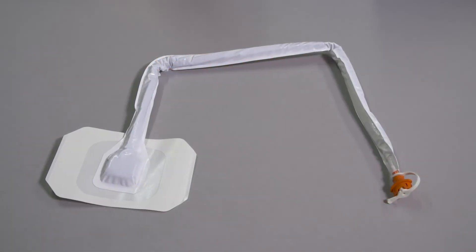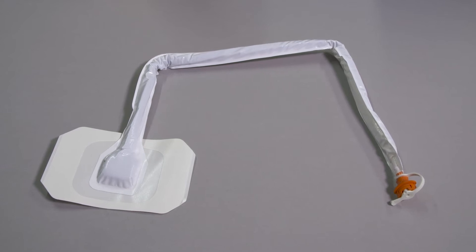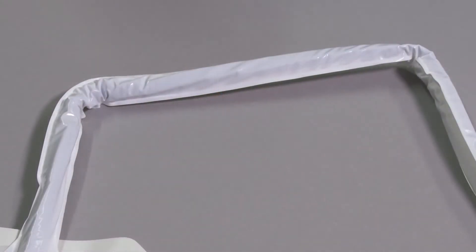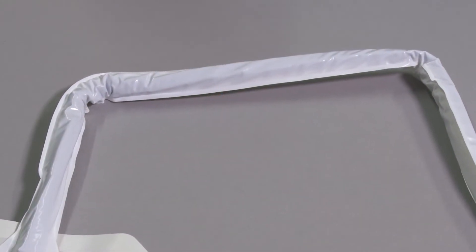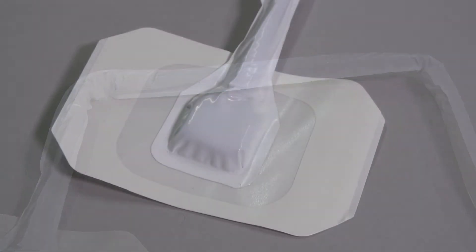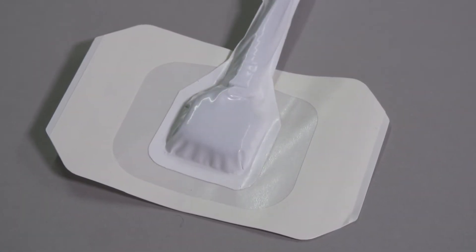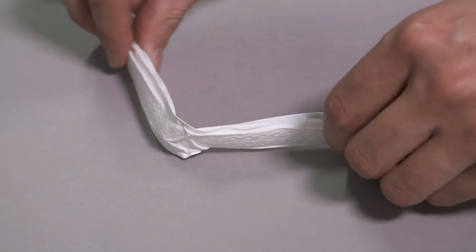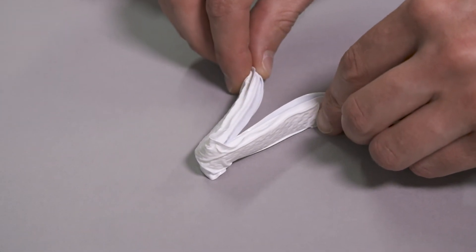The Renesys softport tubing ensures negative pressure is delivered from the pump to the wound. Patient safety and comfort are important, so the tubing must be designed with comfort in mind to help reduce the risk of pressure points, whilst ensuring the delivery of negative pressure even when there is pressure upon the tubing, or the tubing is kinked or bent.